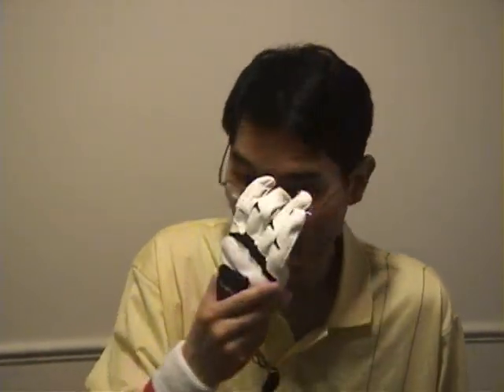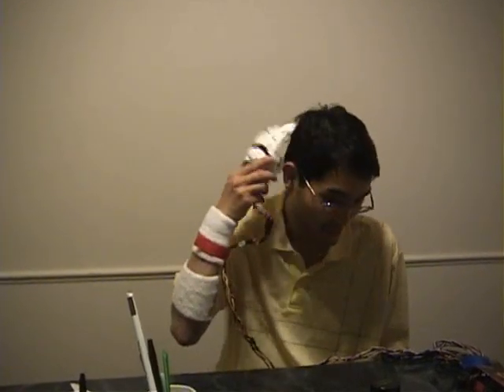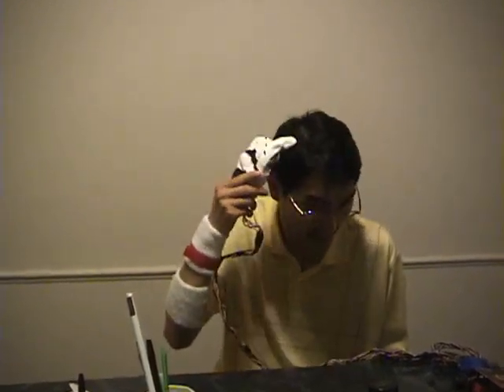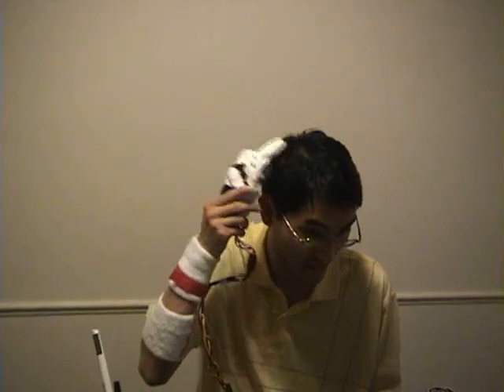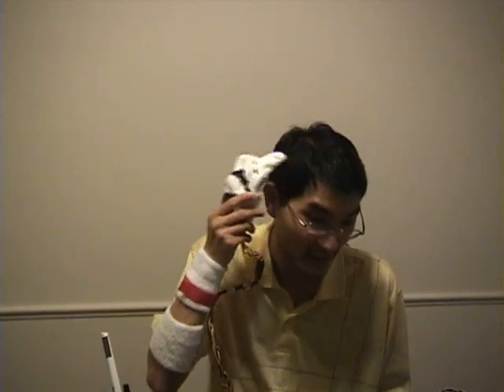Take off the glasses, put them back, fix them up. You can even scratch your nose. You can fix up your hair — in case you feel itchy, you can actually scratch it. You can make it do what you normally do with any other hand.